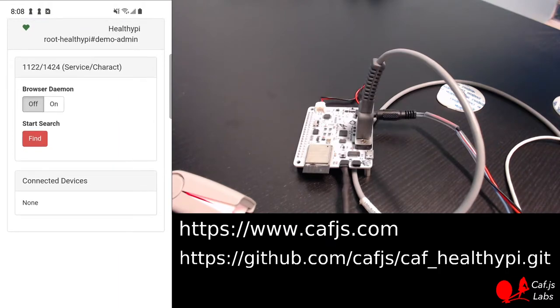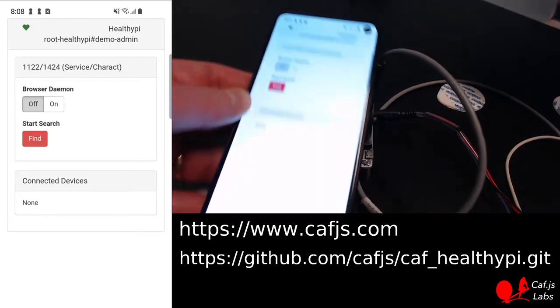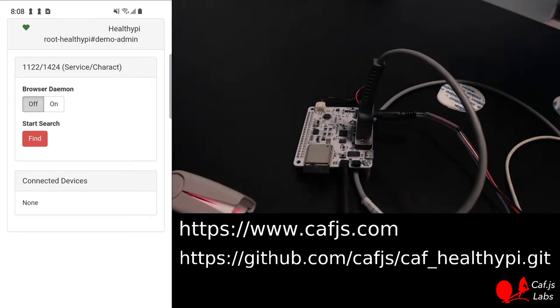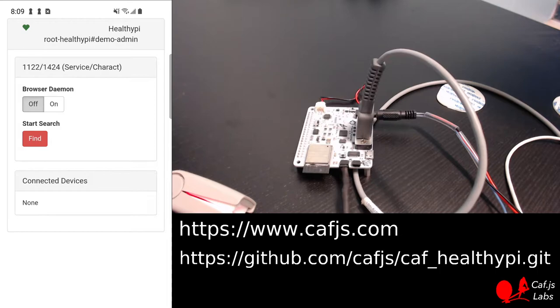What you see on the left panel is just a display of my phone exported through the USB interface as you can see here. And in a moment I will show you on the right a Chrome browser window that runs in my laptop — that's the remote doctor's laptop.